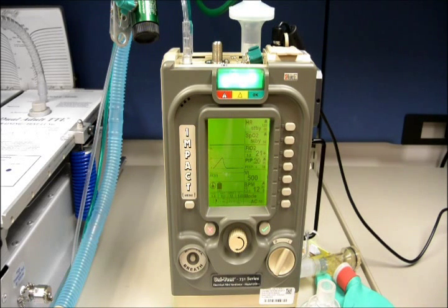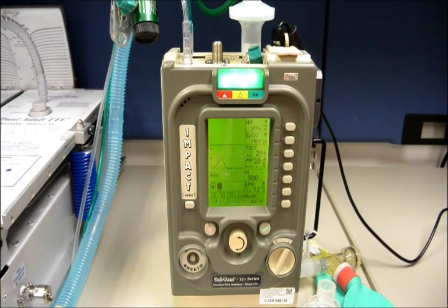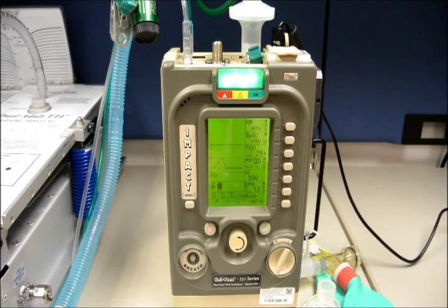In this training, we are going to go over how to set up low flow O2 on the IMPACT 731 ventilator.